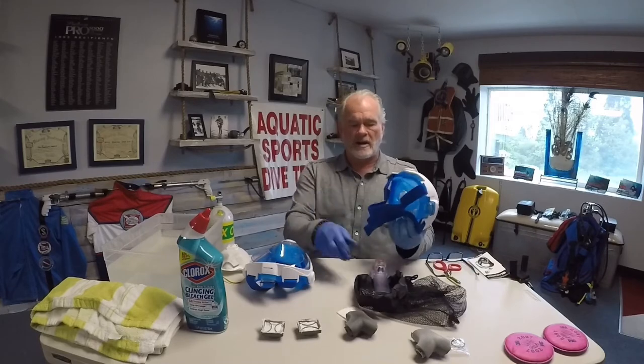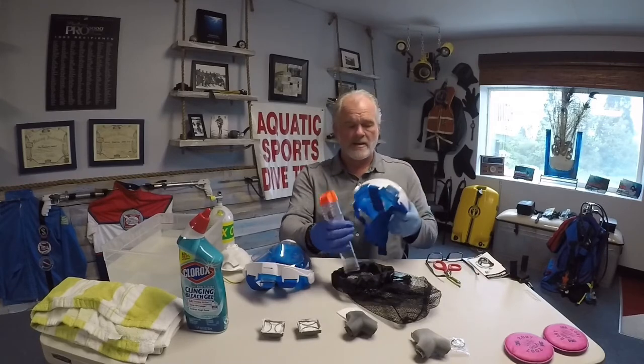Hi, my name is Jeff Powelson and I'm going to go over your new mask that you've now received — how to use it and all the features about how to clean it. You're going to get a mask that comes in a box, three to a box, in an individual mesh bag. Pull the mask out and inside the mesh bag you're actually going to have a snorkel also, but you won't be using that, so just set it aside and put it back into the bag.